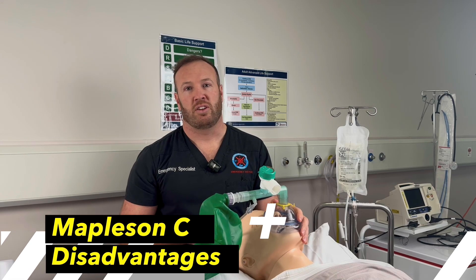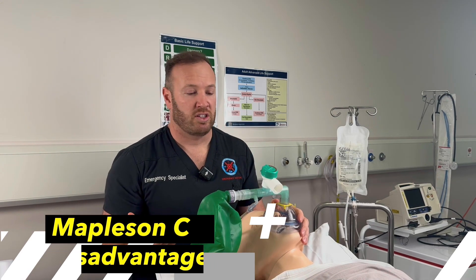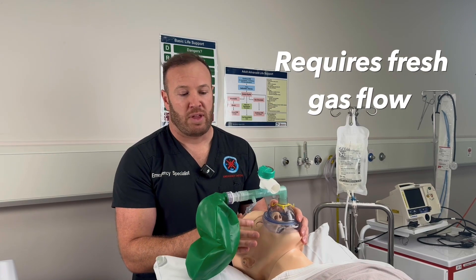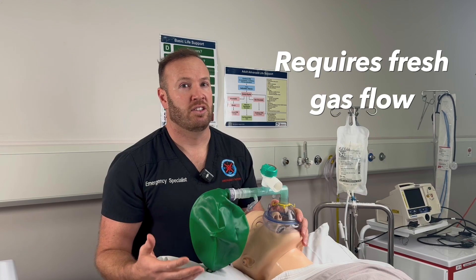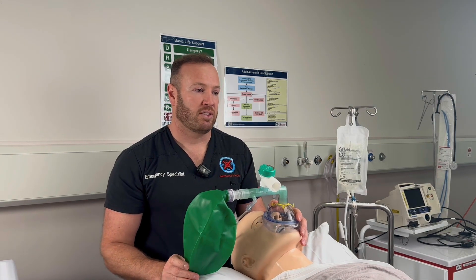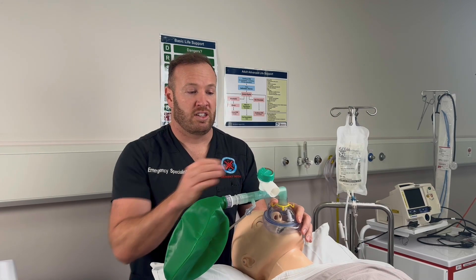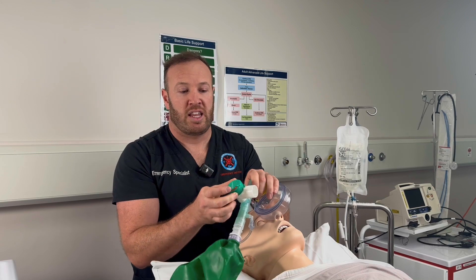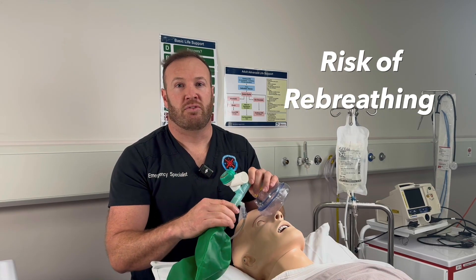There are some disadvantages though. For patient transfer — to the CT scanner or up to ICU — we wouldn't take this with us because it requires a fresh gas flow. Without fresh gas flow the bag will be deflated, and for the apneic patient we then can't deliver breaths. That's a situation where we'd definitely take a self-inflating bag instead. The other disadvantage to watch out for is if you put the APL valve up to maximum, you have a very high pressure required before there's off-gassing, and that can result in re-breathing.